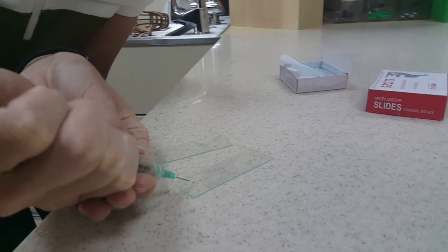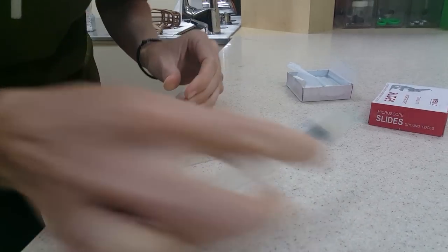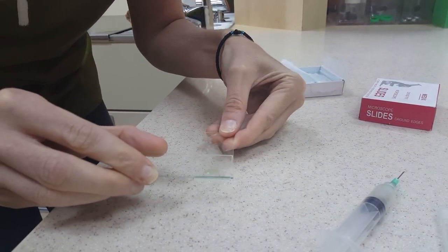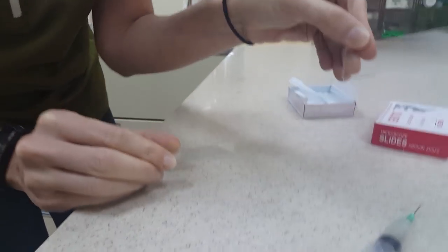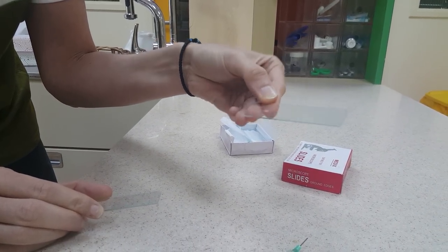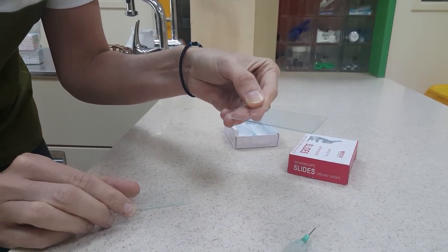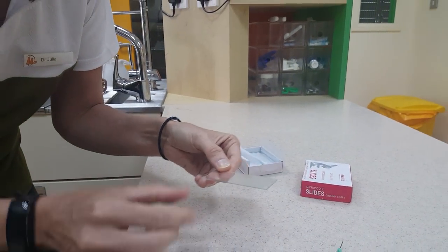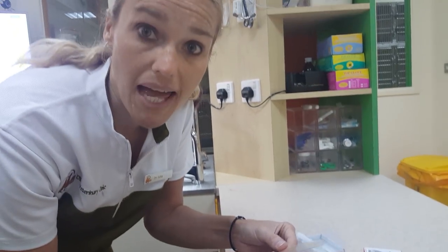Now what I'm going to be doing is taking a little drop of the sample of cells that I collected from that mass, and actually just smearing it out onto the slide like that. You can see there it's a little thick layer of smear, and it thins towards the end, which is also what we want to see. And then we'll dry this and we'll stain it, and hopefully we'll get a diagnosis from there, and we can figure out a plan ahead for her.